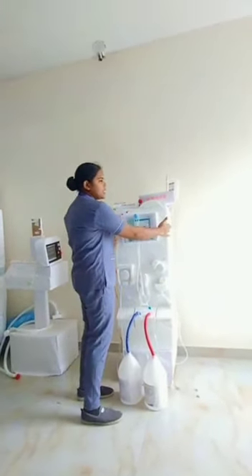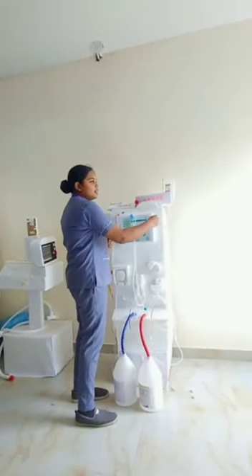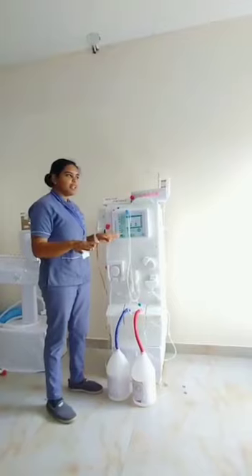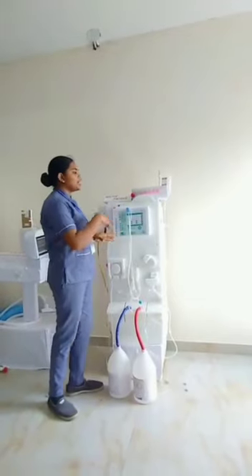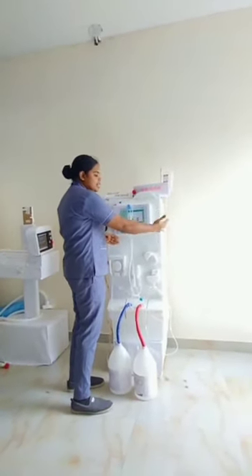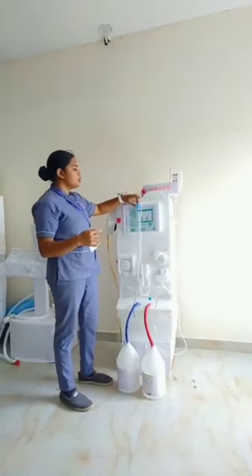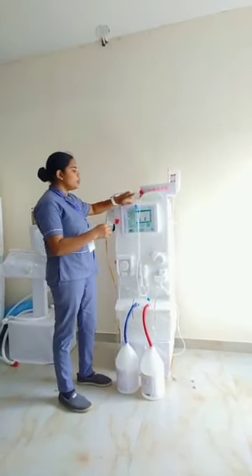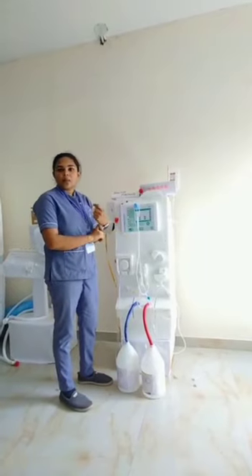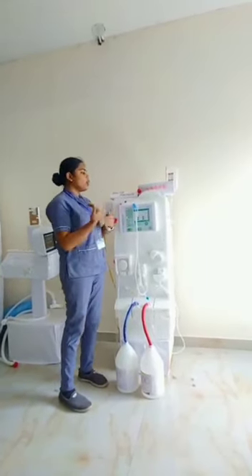After the dialysis process, the unwanted and excess fluid is removed, and the good dialyzed blood goes out through the blue colored tube or blue colored needle which is attached to the patient — the blood is going back.